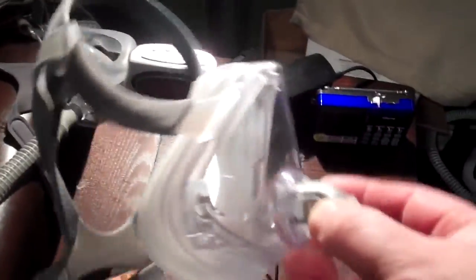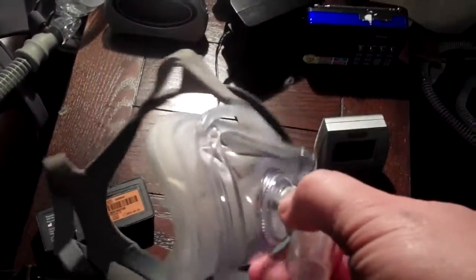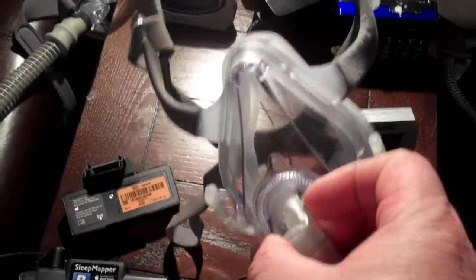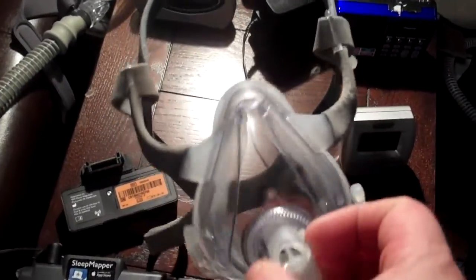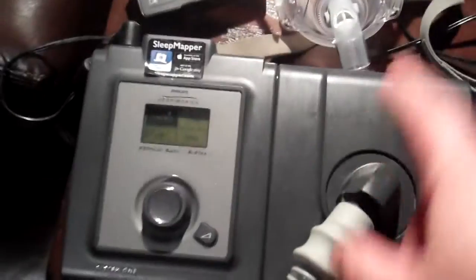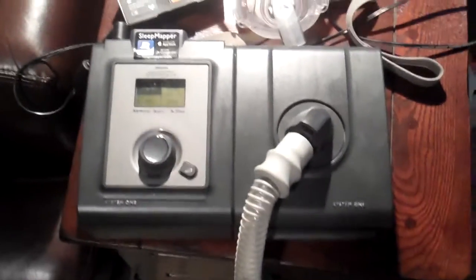And usually they'll wake you up in the middle of the night to put the CPAP mask on you. This is what a mask looks like, or a face piece. I have to use a full face one because I have a deviated septum, but they have some other sleeker, sexier styles out there. And when you get into this machine, you'll be all over what kind of mask you have and stuff.